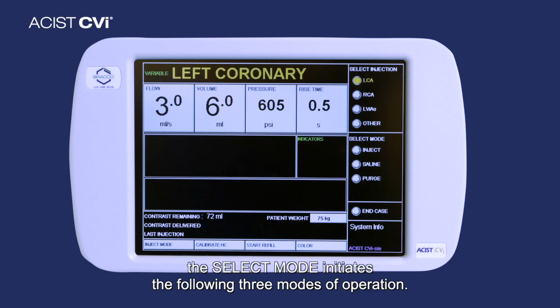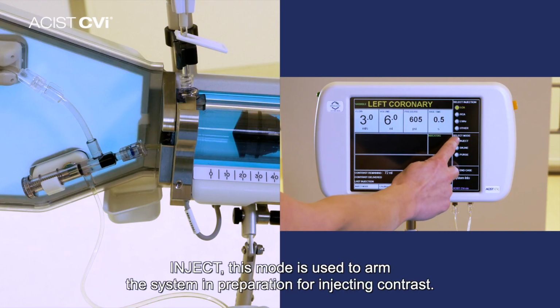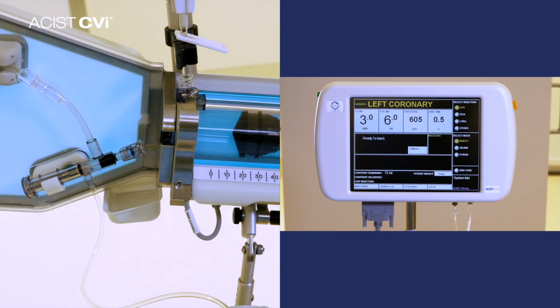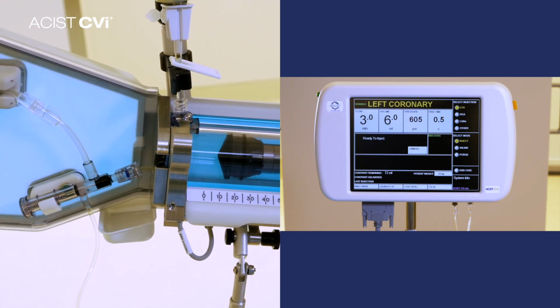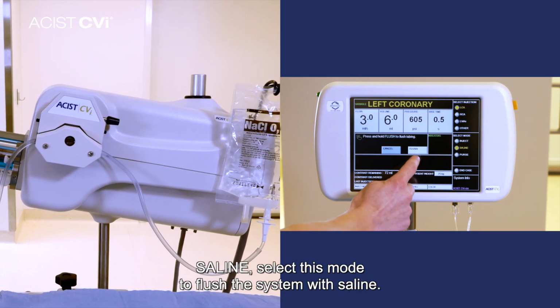Select mode. The select mode initiates the following three modes of operation. Inject. This mode is used to arm the system in preparation for injecting contrast. Saline. Select this mode to flush the system with saline.